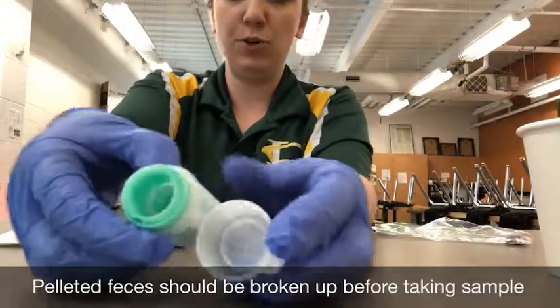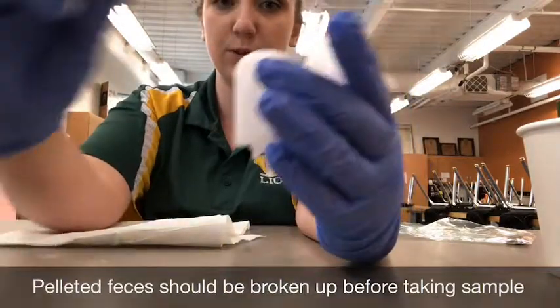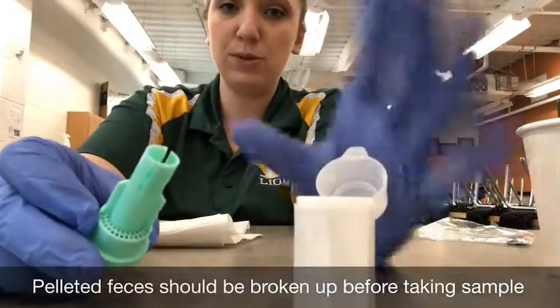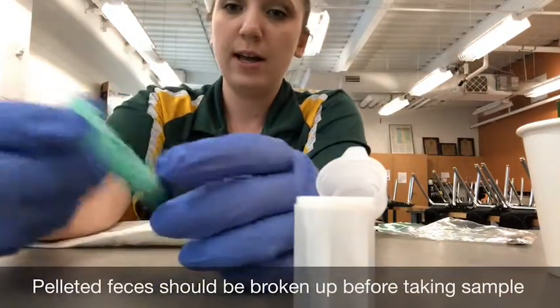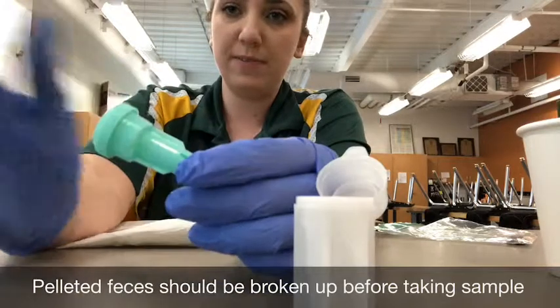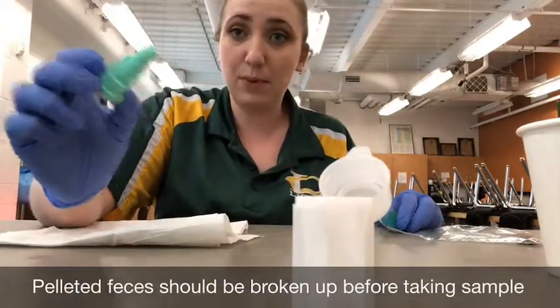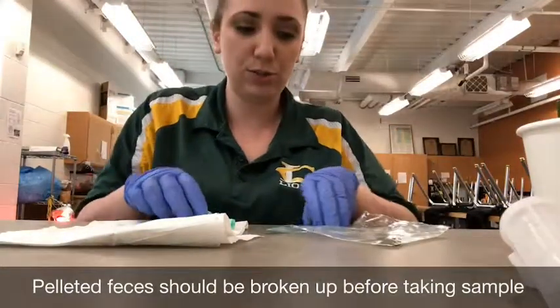In a fecalyzer tube, there's two parts. There's the main tube and there's this green section which kind of pops in and out. You want the fecal sample to go on the outside. You do not want it on the inside of this strainer. And with these little fecalyzer kits, it actually is set up so that you can grab a sample of the perfect size without getting your hands too dirty.